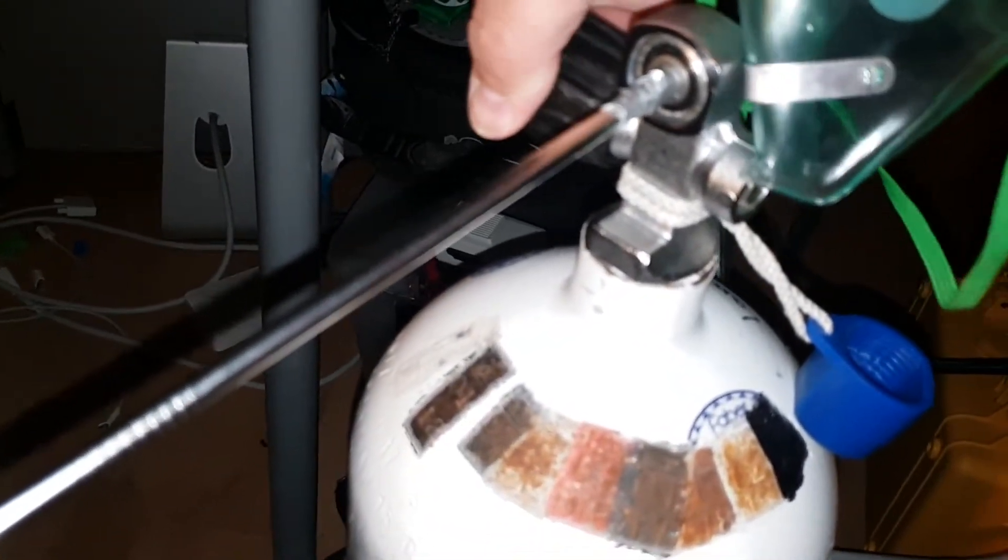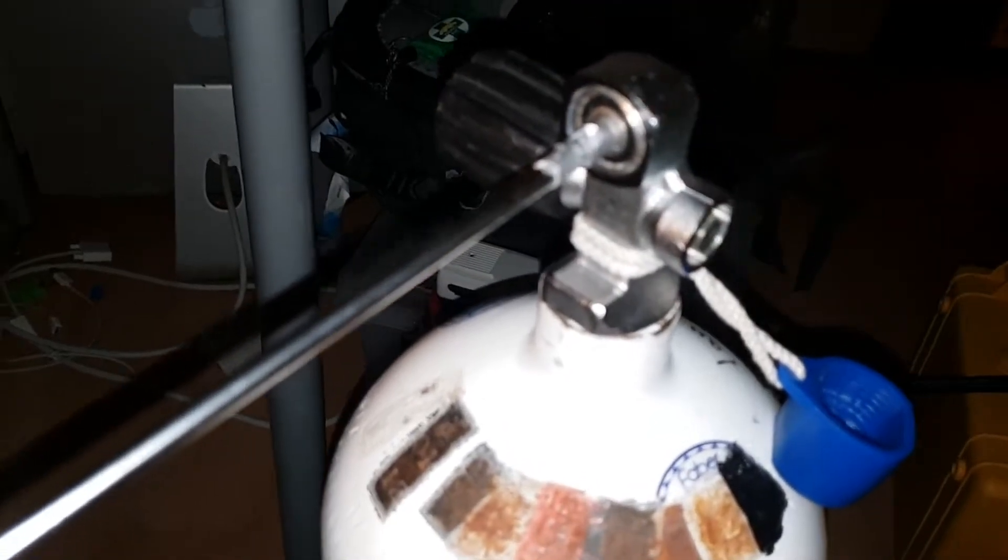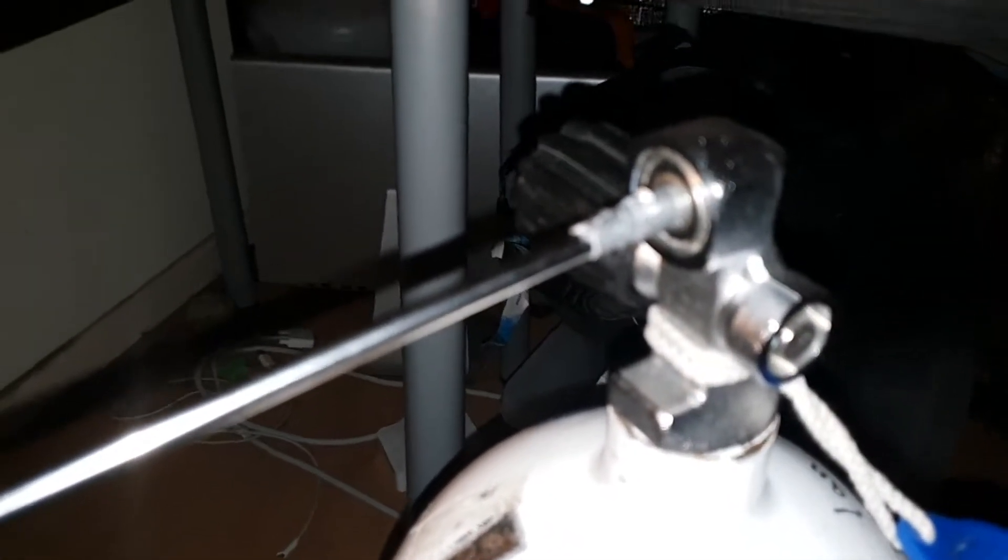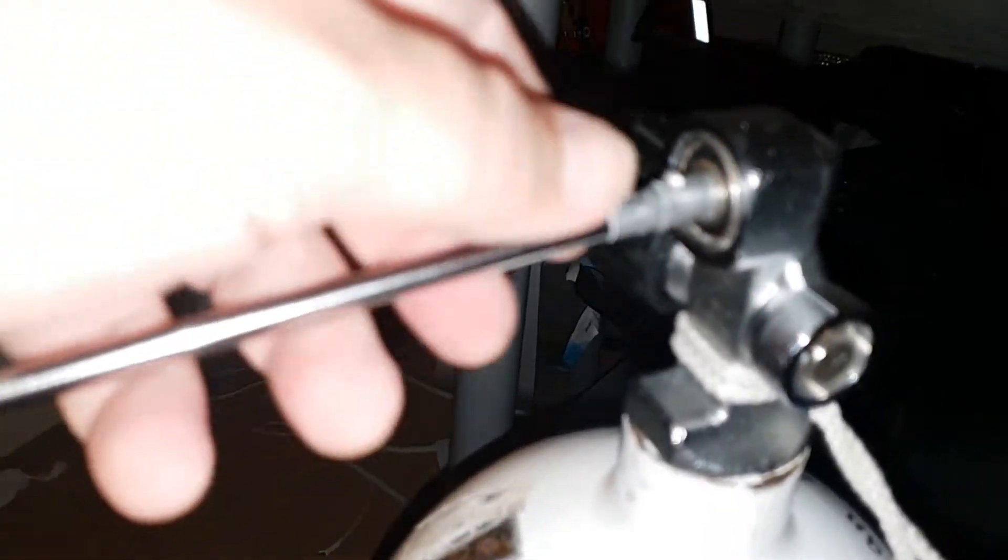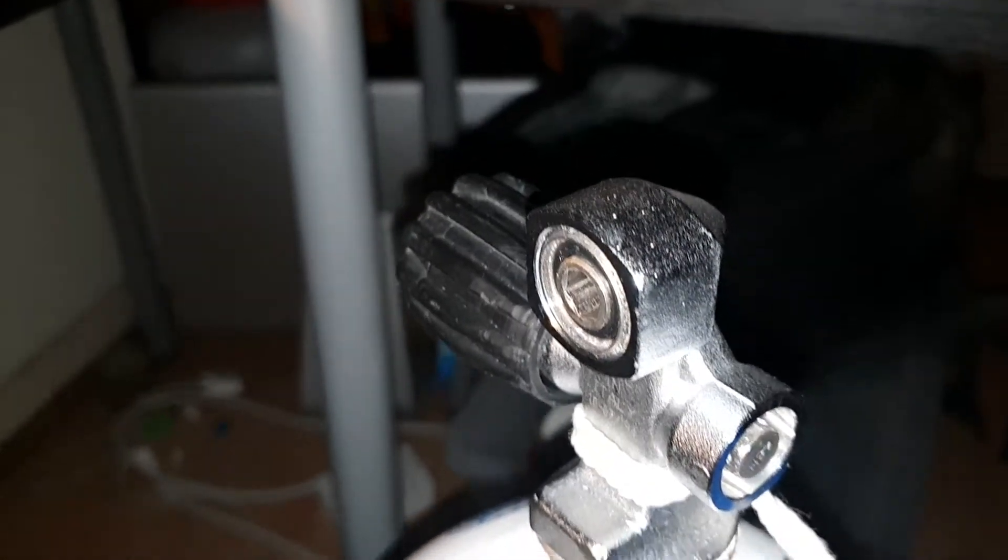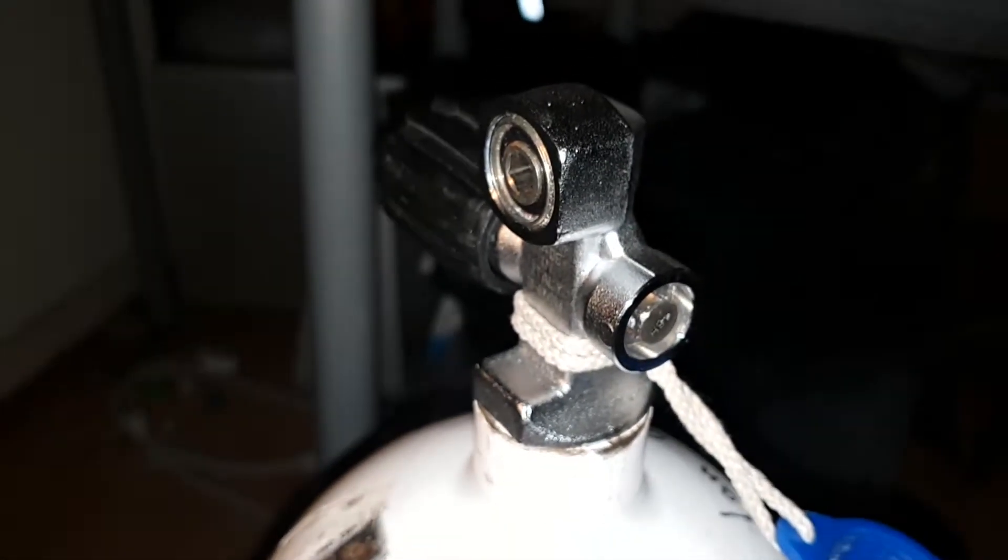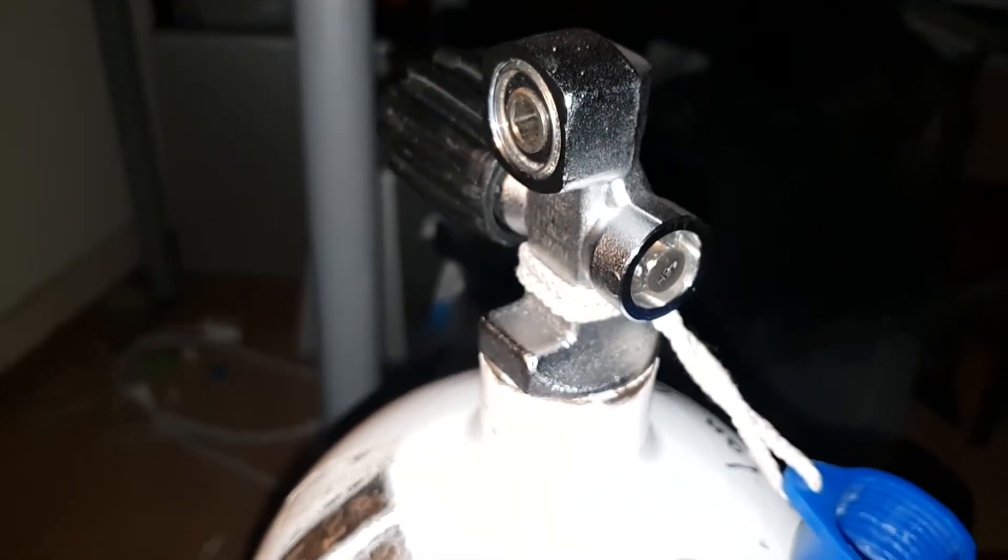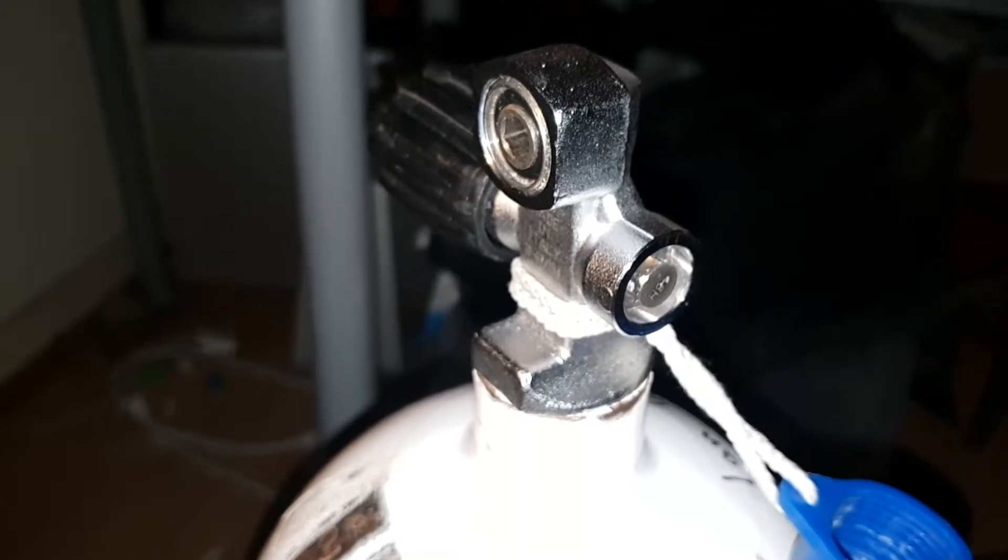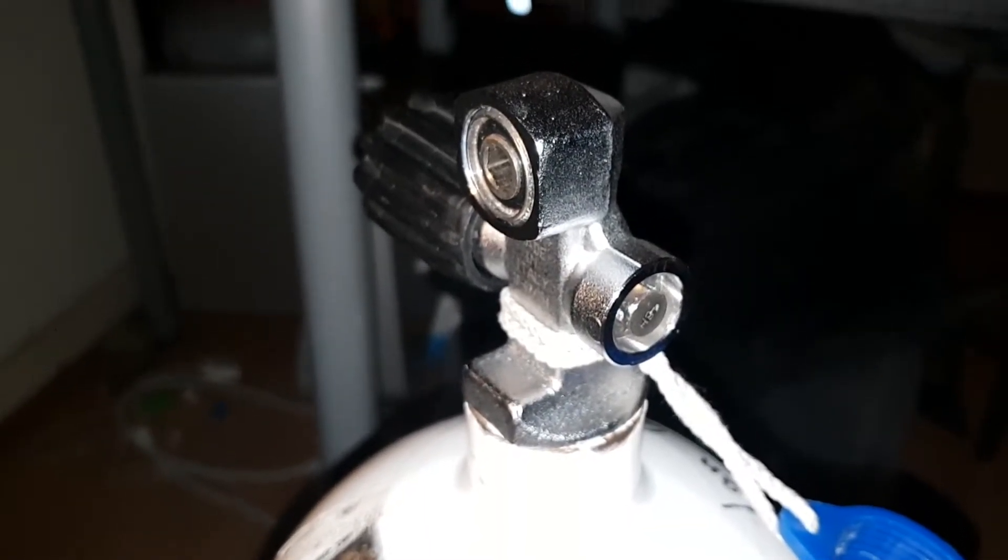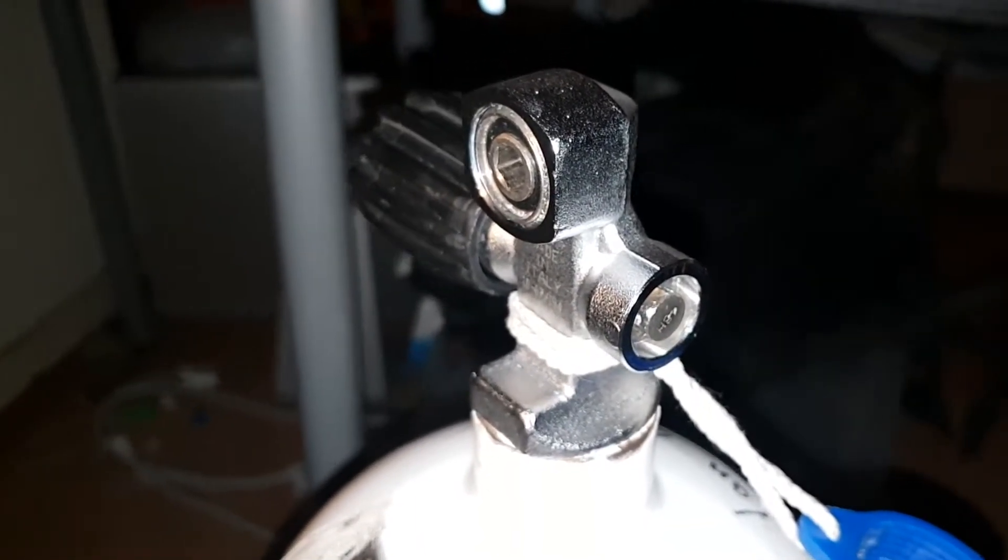Now that's our basic premise: two different solutions depending on what equipment is available. One is using a metal adapter to take it to existing gear, but the main point is oxygen or high oxygen air is being delivered in bottles donated by the scuba industry and private hands, and the scuba industry will be responsible for filling them, oxygen servicing them, and even delivering them.